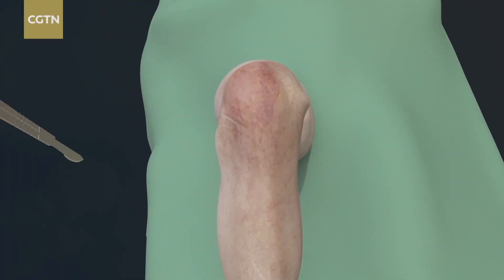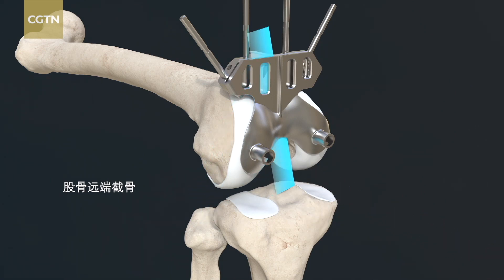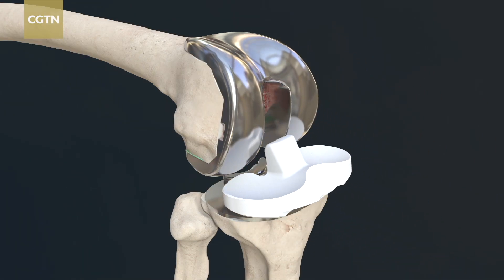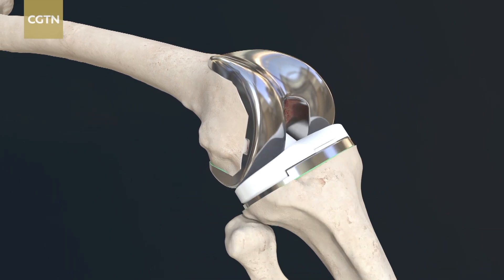The new process would see each patient with a unique prosthesis and matching surgical guide to help implantation. The surgical time can also be shortened by half.